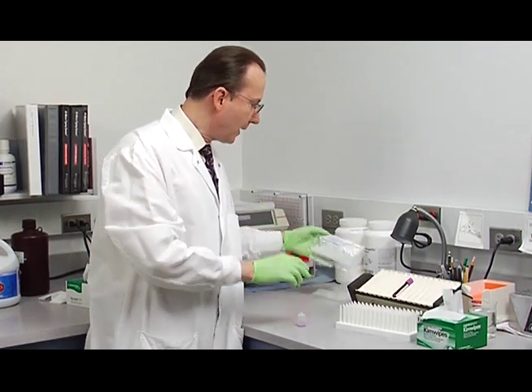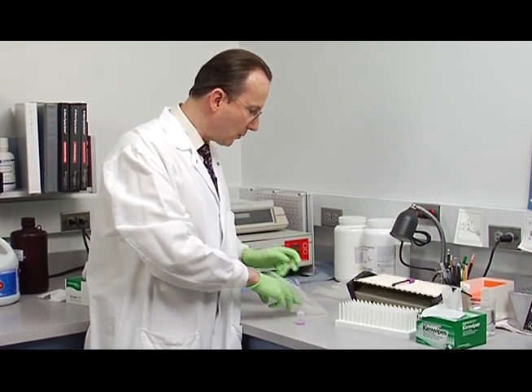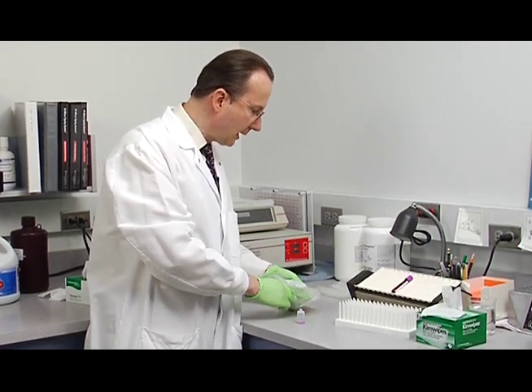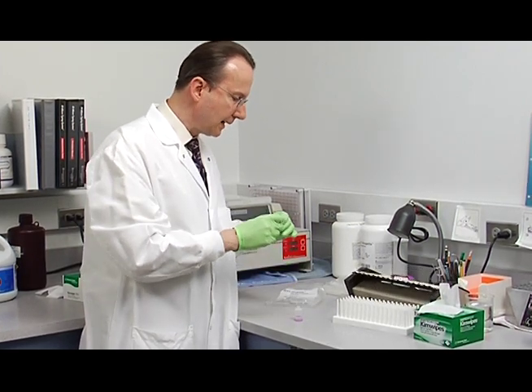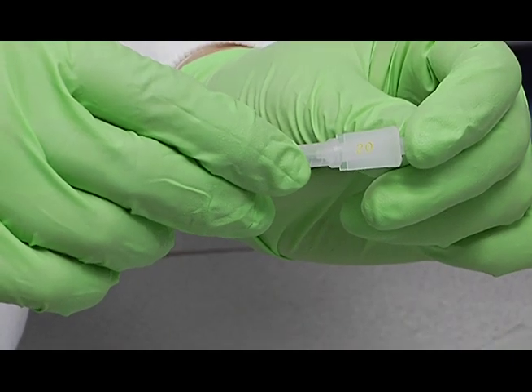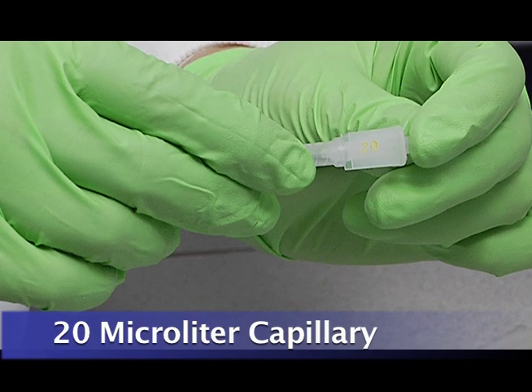The first step of preparing these is to find the appropriate capillary. And on the canister, it will tell you the size of capillary tube that you need. This particular reservoir requires a 20 microliter capillary.